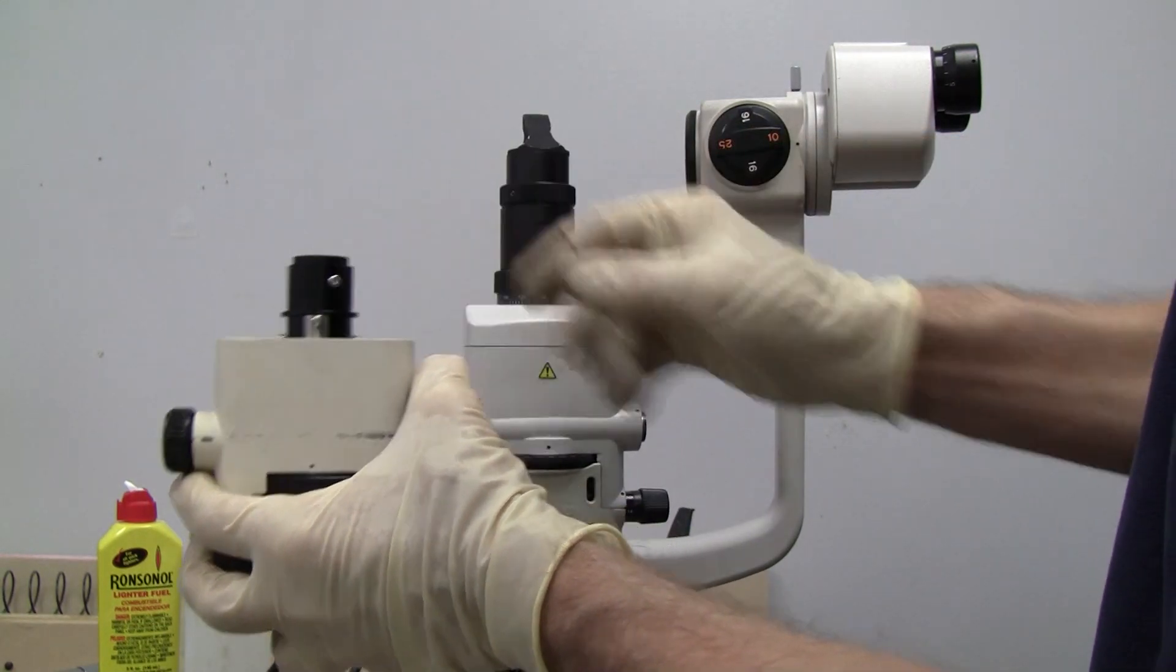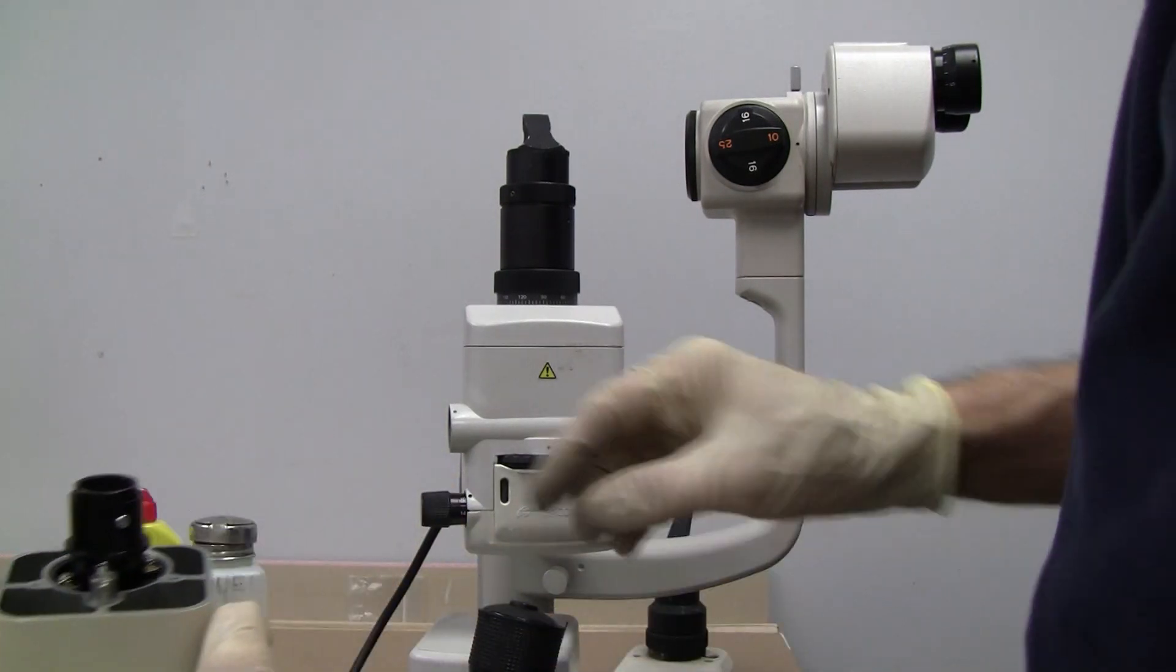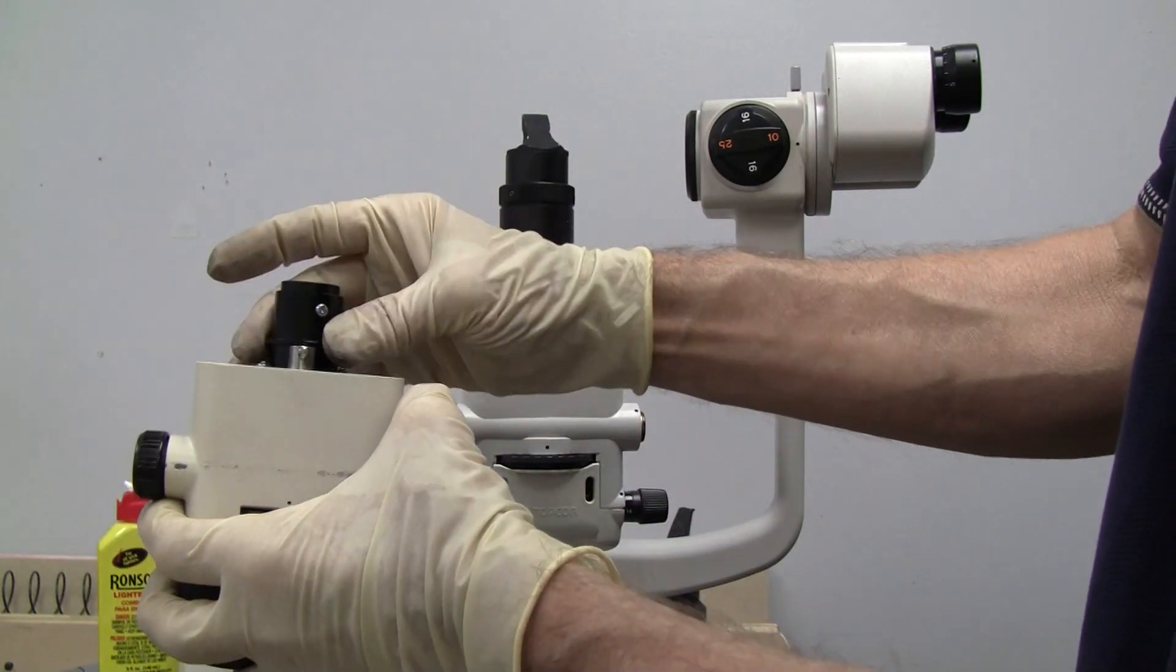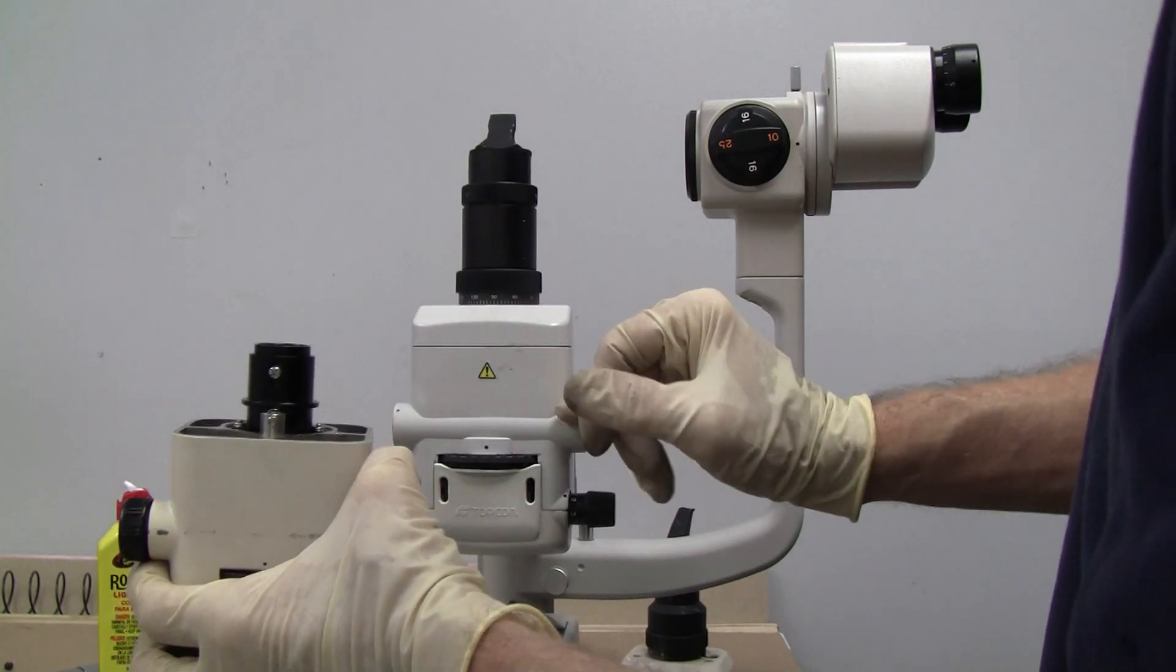So that's what we're going to clean. And when we're done cleaning it, it's possible that even if it doesn't solve it, it's possible that this little piston has gotten gummed up too.